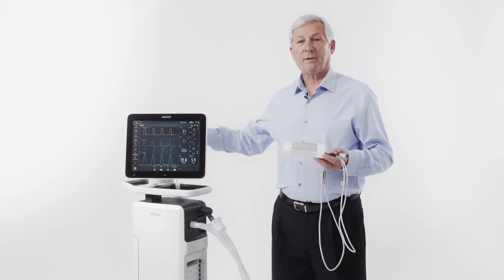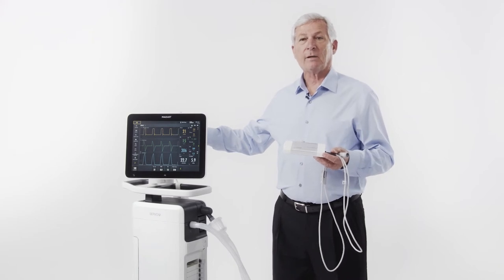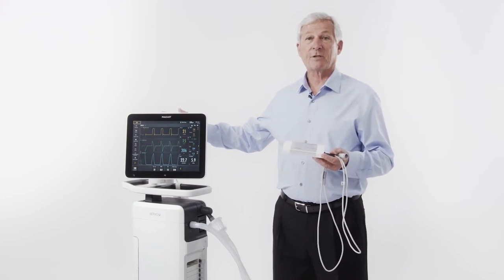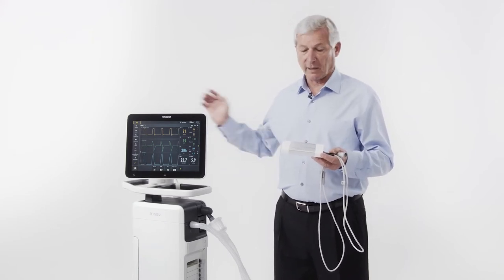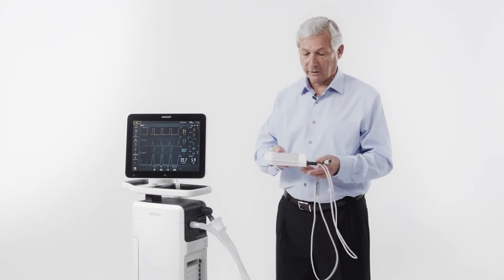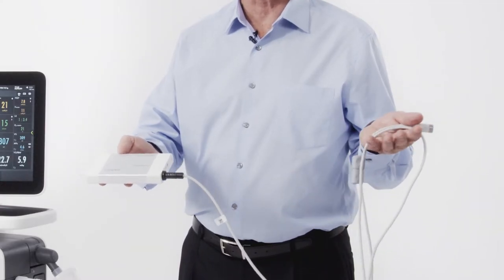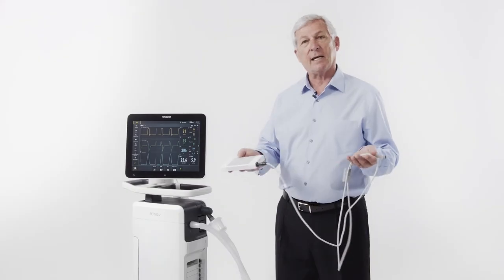Ready to begin NAVA, you'll require four things: NAVA software on your ventilator, an EDI module, an EDI cable, and an EDI catheter.